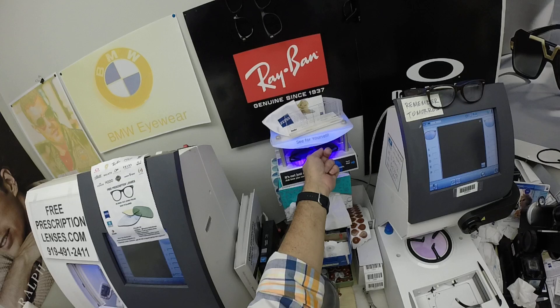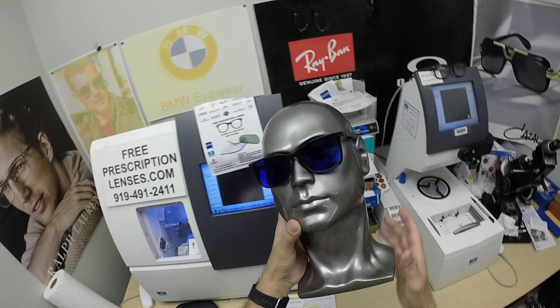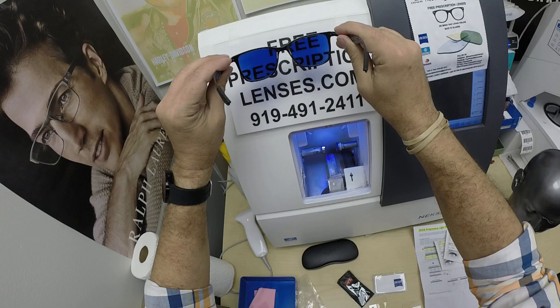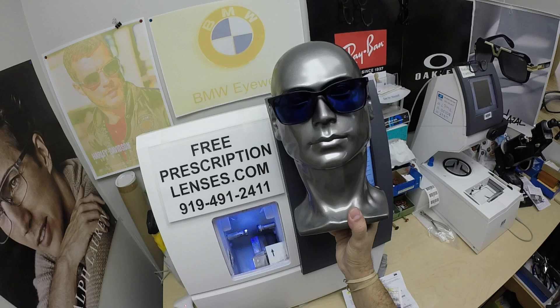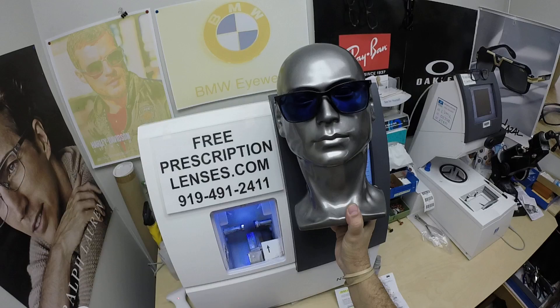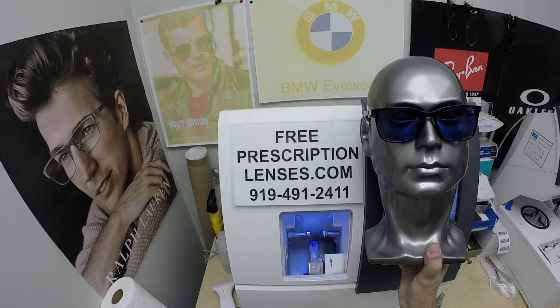After that they will work for years at maximum performance. The only time they won't work perfectly is if you're behind the windshield of a car — your windshield absorbs the sun's harmful ultraviolet rays that would cause your dashboard to crack from sitting in the sun all day, and that's why they don't turn dark in a car. Look how awesome that is! These new Zeiss Photofusion Blue will get up to 30% dark behind a windshield. They're also temperature sensitive, meaning they'll get darker when it's 85°F and below than when it's 95°F and above. Nobody and nothing works 100% when it's 100 degrees outside; we all work much better when it cools off.